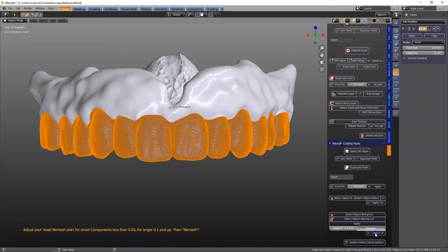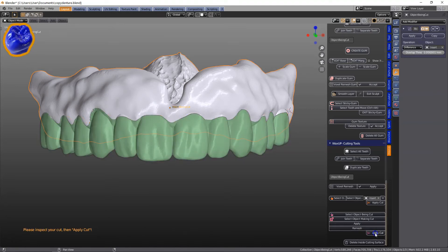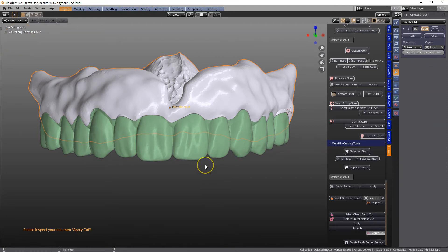And then apply cut, and we know that we have an offset calculated in there so that when you print it, it will then fit.